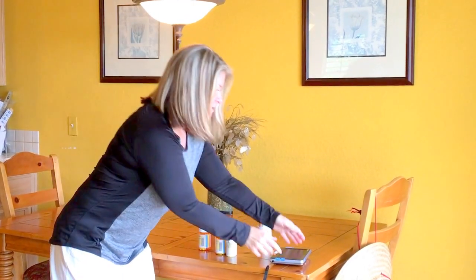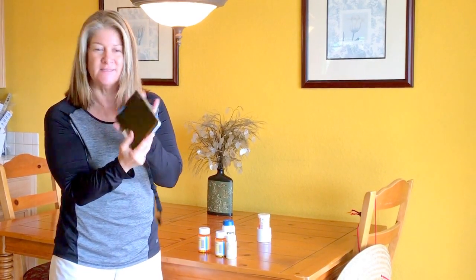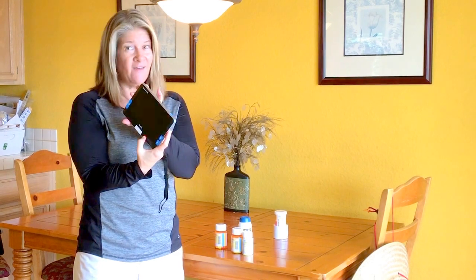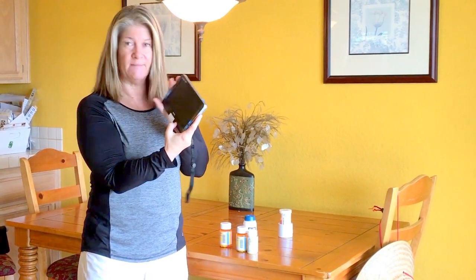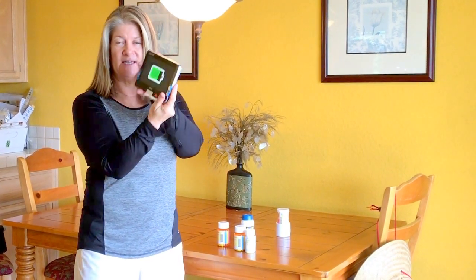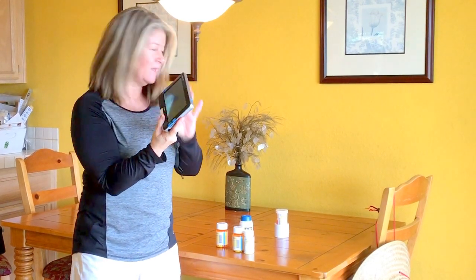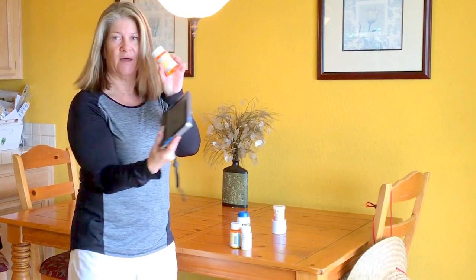But what if a lot of them are the same size and they sound the same? You're probably gonna pull out your magnifier, which is every blind kid's — if you have any vision left — best friend. This is mine, it's an Optelec 7 HD and I love it. Let me turn it on and show you how that works. I use this to read a ton of stuff and it's usually in my kitchen.